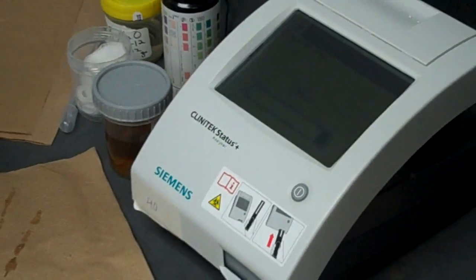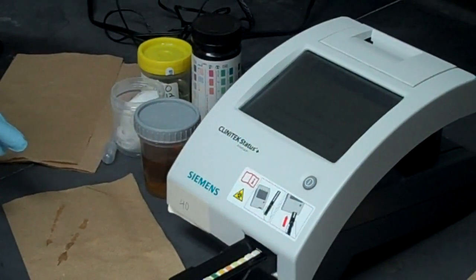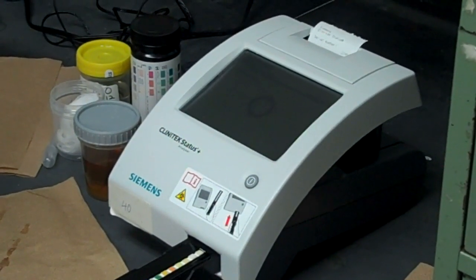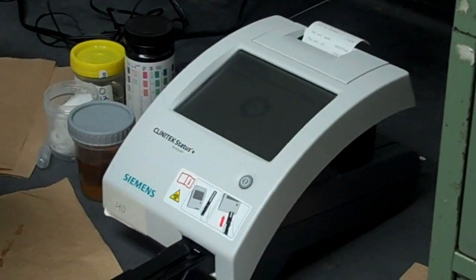And it's analyzing. So we wait for the results. It's done. It's done. And you can dispose of that strip into a biohazard bag.